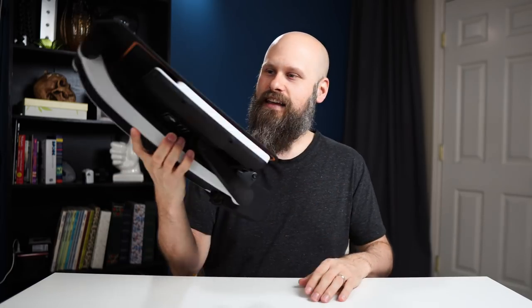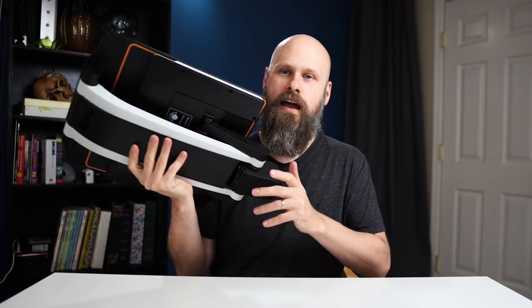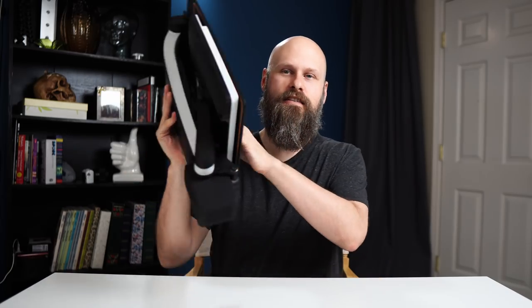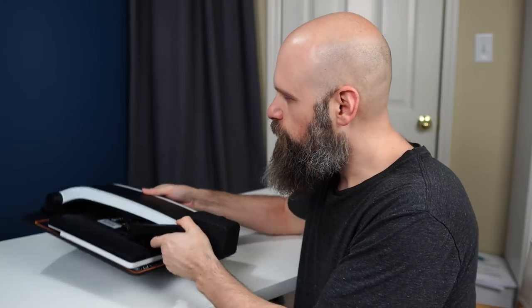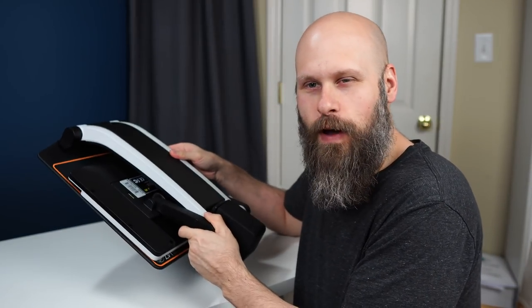If you are new to vision impairment, a CCTV — a desktop digital reader, digital magnifier — it's got a lot of different names. It can be so helpful. It's always been one of my must-haves for low vision. And there's a new trend in CCTVs: making them smaller, portable, and easier to use. Here is the Zip — fold it down, super compact, lightweight.